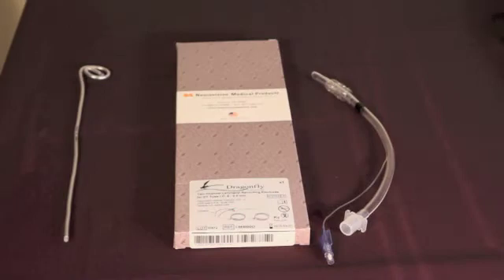Now I'd like to share with you the process for applying the Dragonfly 2-channel laryngeal surface electrode to the endotracheal tube.